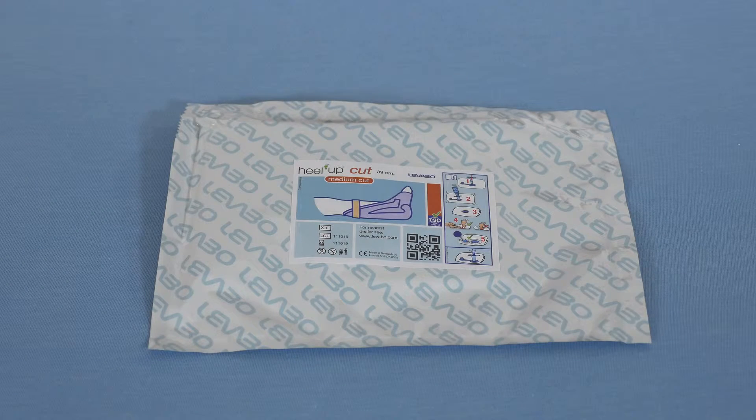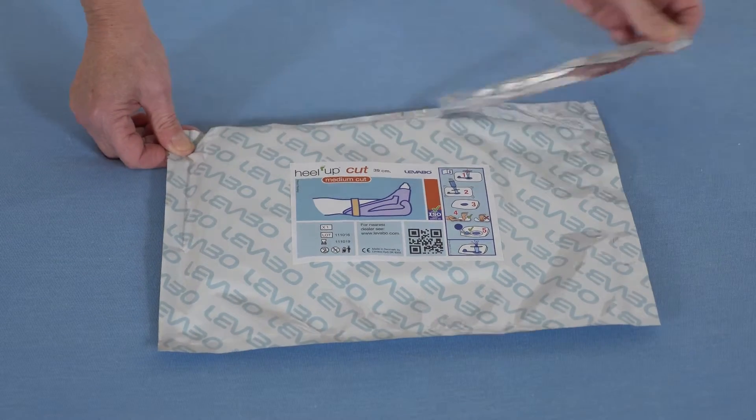It can be used for the same patient for a set period of time and comes in a hygienic small package, making it easy to carry and store.